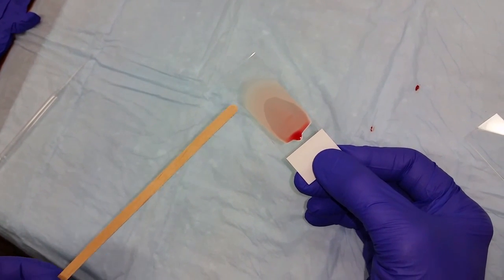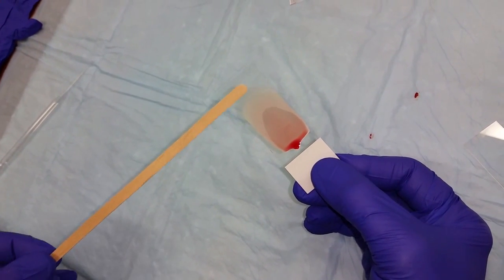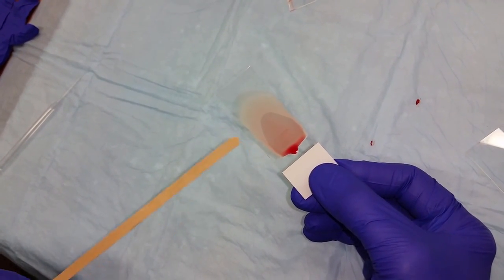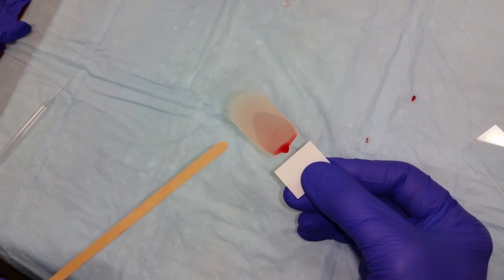The distal portion is known as the feather edge. You can see it's a much thinner area. You want to wait until the slide is completely dry. It takes about five minutes.